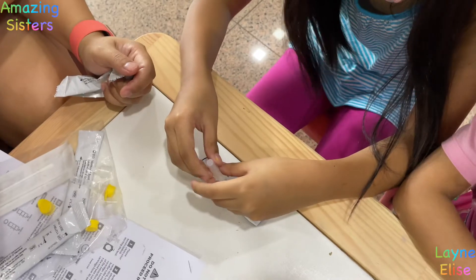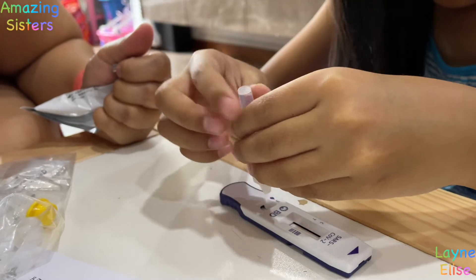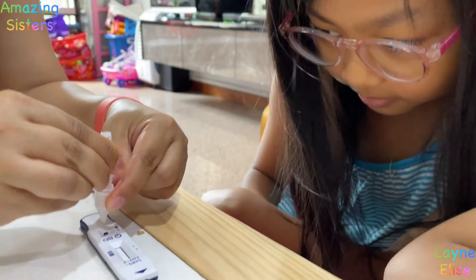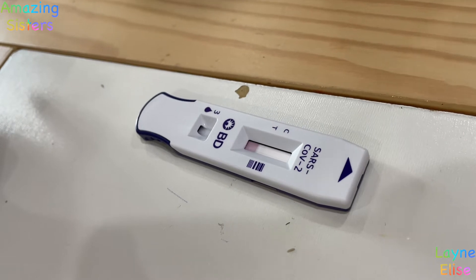Here on me. I cannot see. How many squeezes? It's okay, just go. Squeeze. How many squeezes? You squeeze first. There it is! Then we'll just wait for it — fifteen minutes — until we see the result.